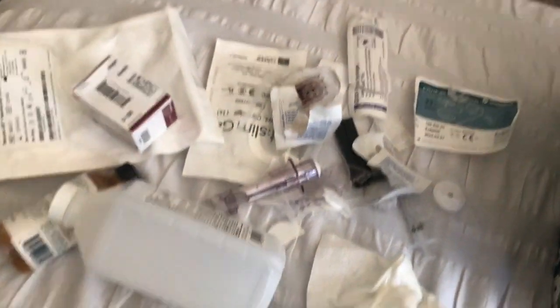Here's what it looks like after I have finished my site and my CGM. I hope that helped. I'm going to tell my pump, 'Hey, I put in a new CGM, you need to talk to it.' In three hours it's going to ask me to calibrate it, and when I do that I'm going to take two blood sugar readings on two different fingers — one from each hand.